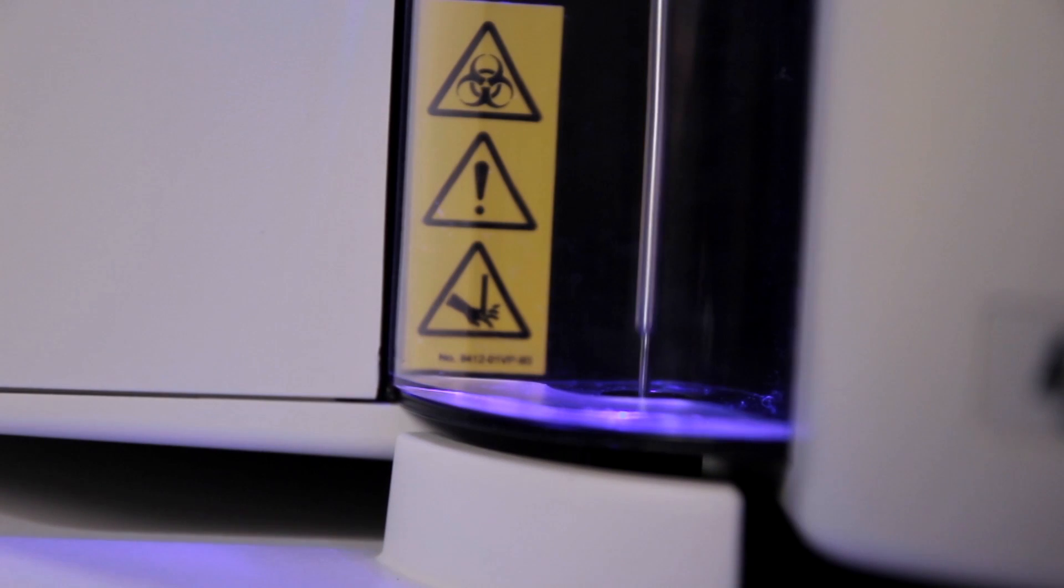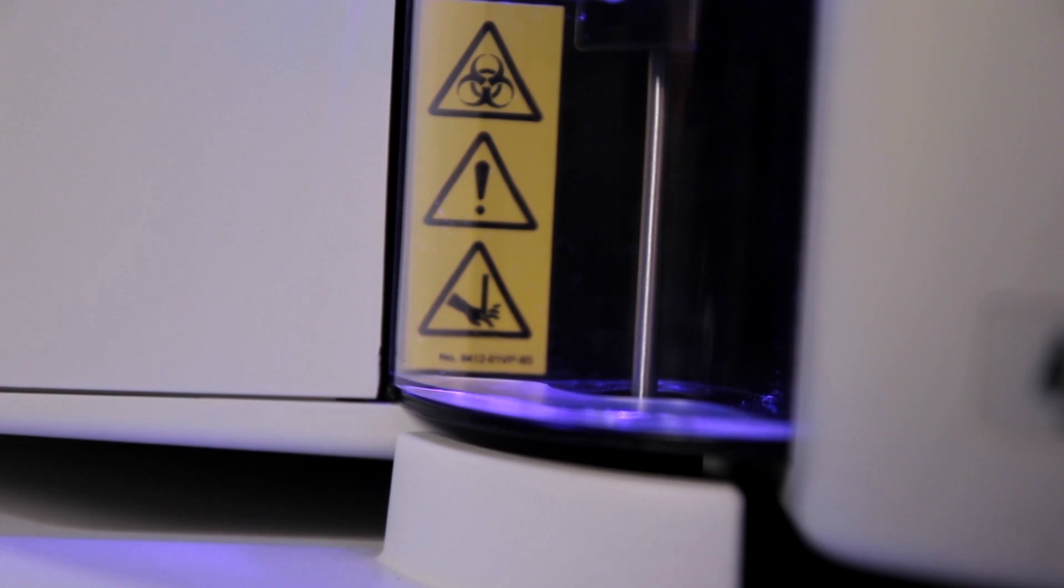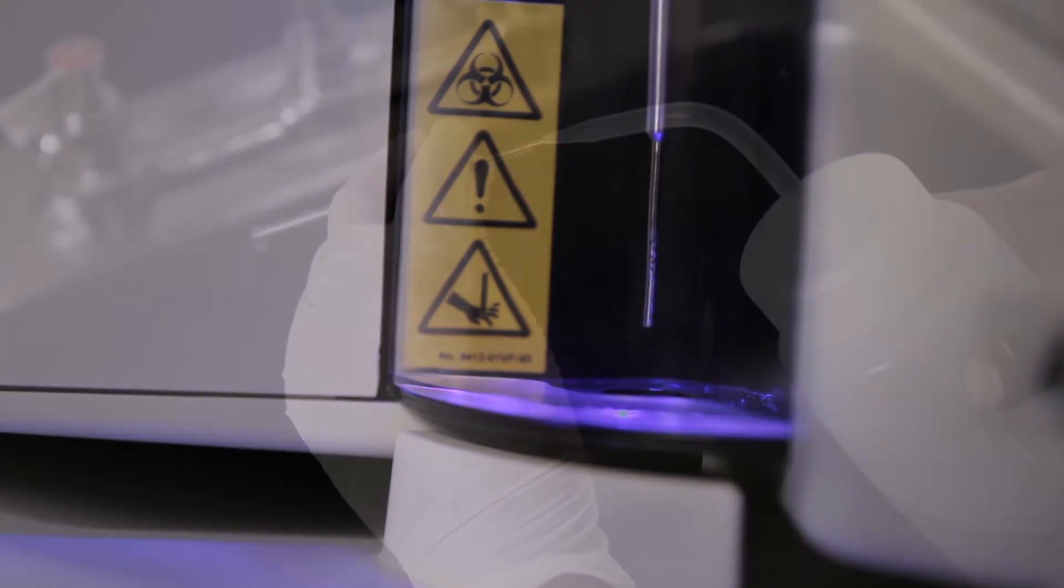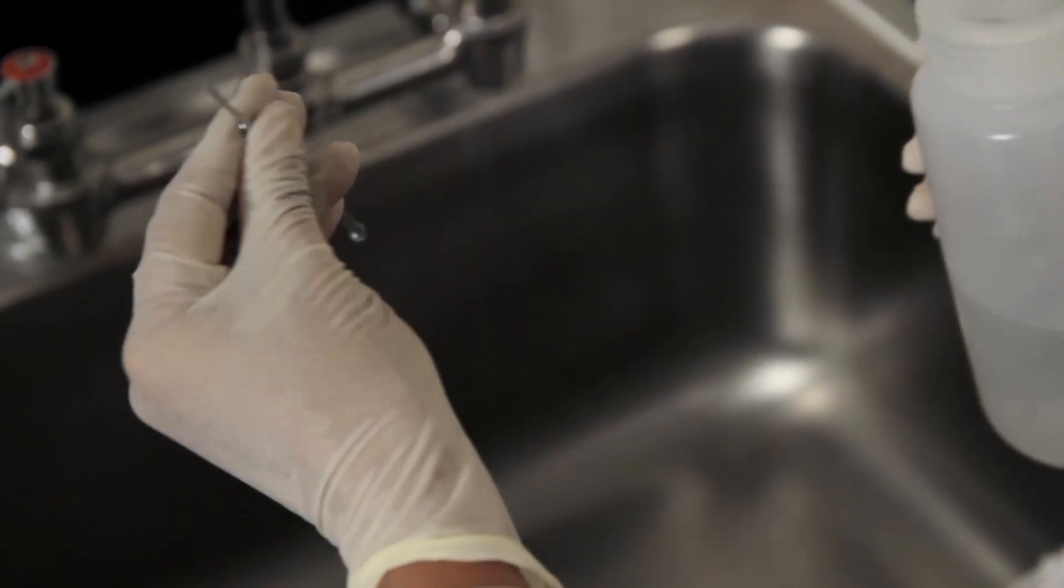Your Bioplex system uses a probe or needle for sample pickup. In order to prevent low bead count due to needle clogging, this probe will need to be cleaned periodically.